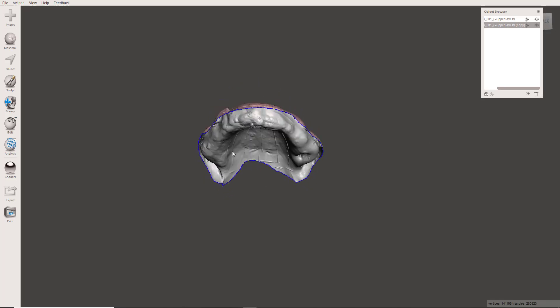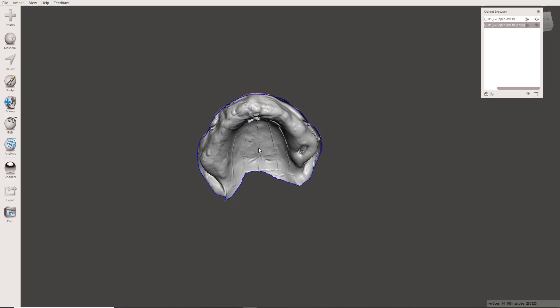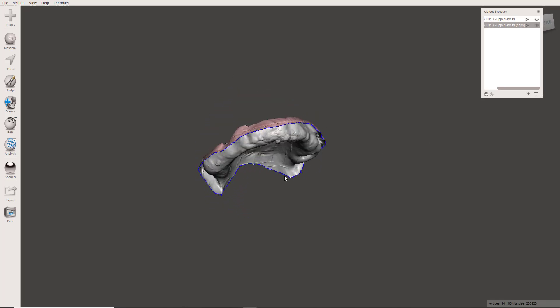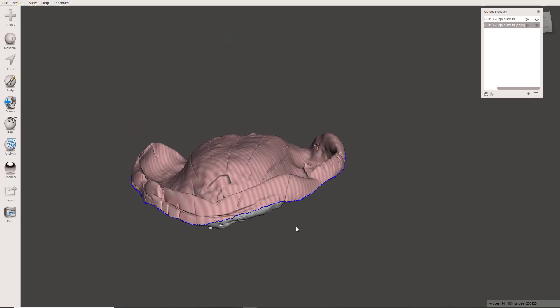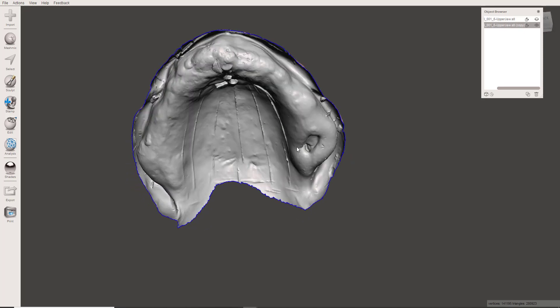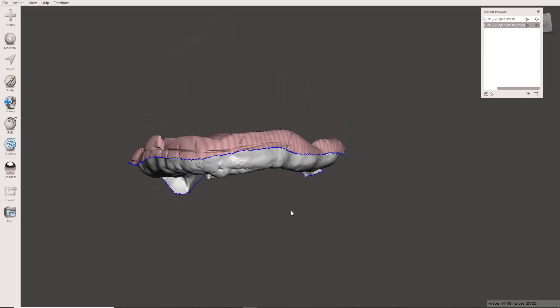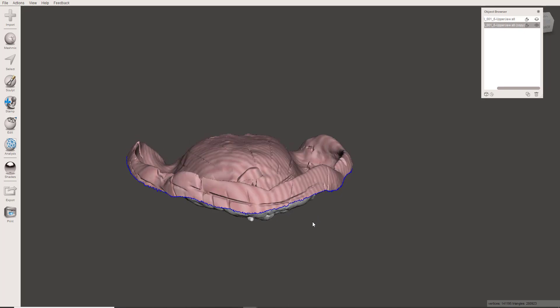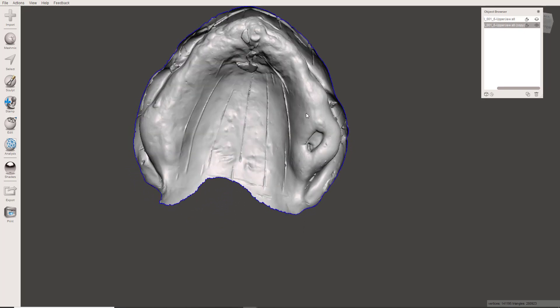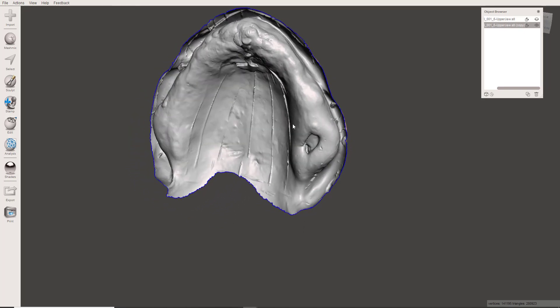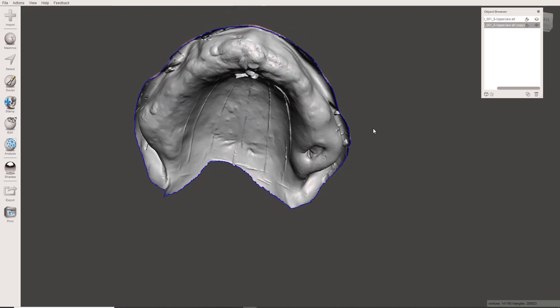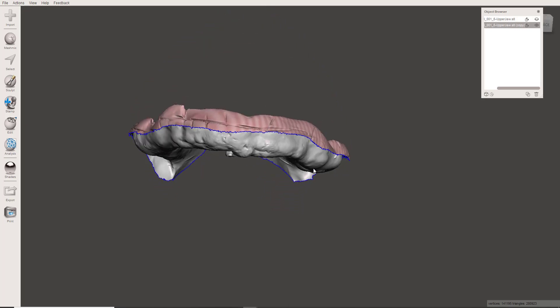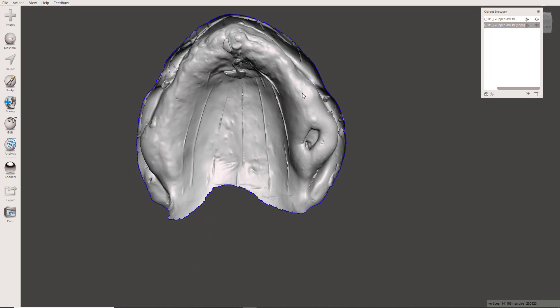I'm going to make a quick video here showing a solution to a problem that has plagued me for some time with the digital denture stuff. What you're seeing right here is a model that was generated by scanning an upper edentulous impression. This is my most common workflow for dentures - scanning the impressions and then turning those into working models.